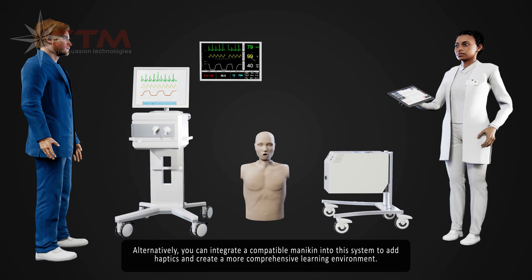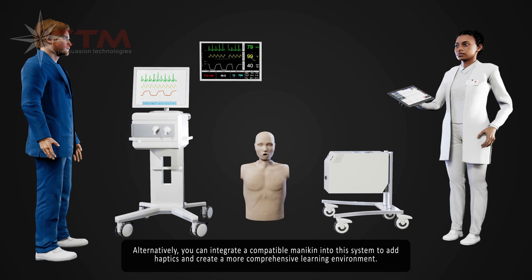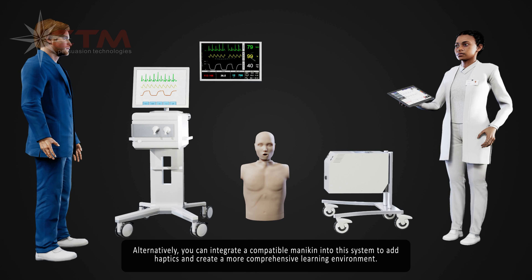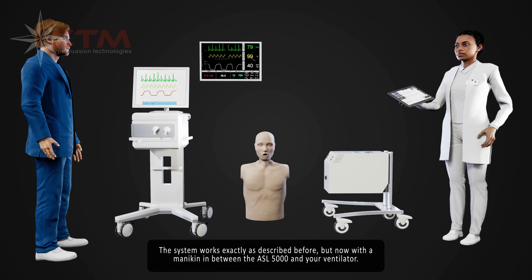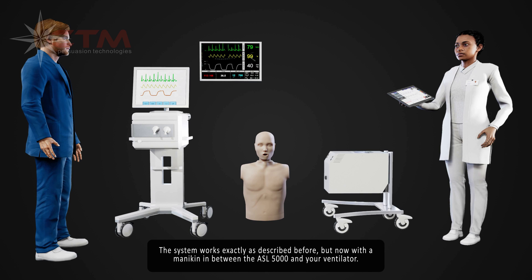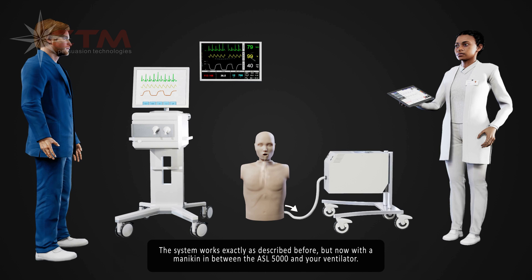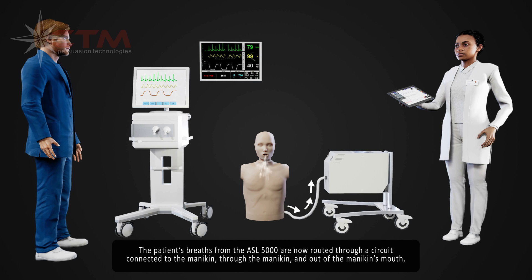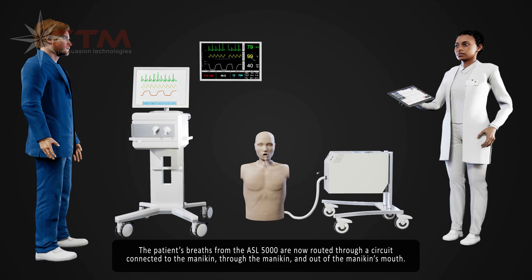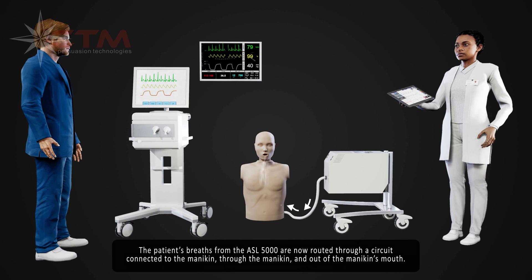Alternatively, you can integrate a compatible mannequin into this system to add haptics and create a more comprehensive learning environment. The system works exactly as described before, but now with a mannequin in between the ASL5000 and your ventilator. The patient's breaths from the ASL5000 are now routed through a circuit connected to the mannequin, through the mannequin, and out of the mannequin's mouth.